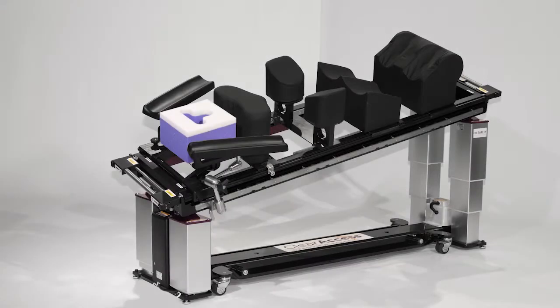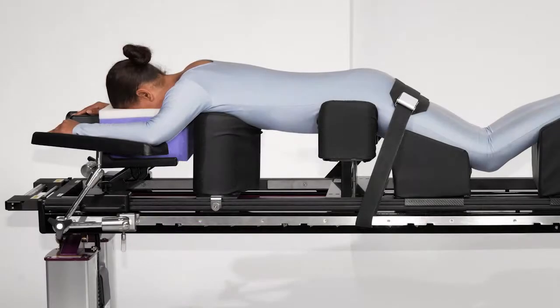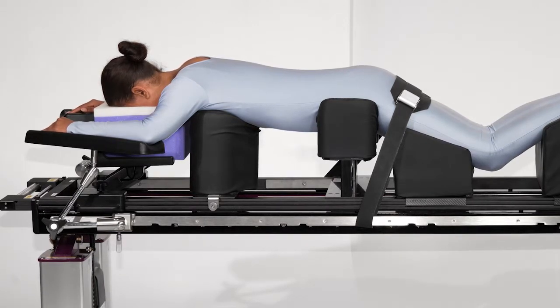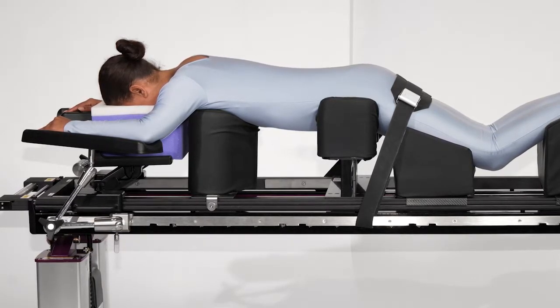When these components are assembled into the prone platform, they allow the patient's belly to fully distend, reducing back pressure on the vena cava and blood loss during spine procedures.